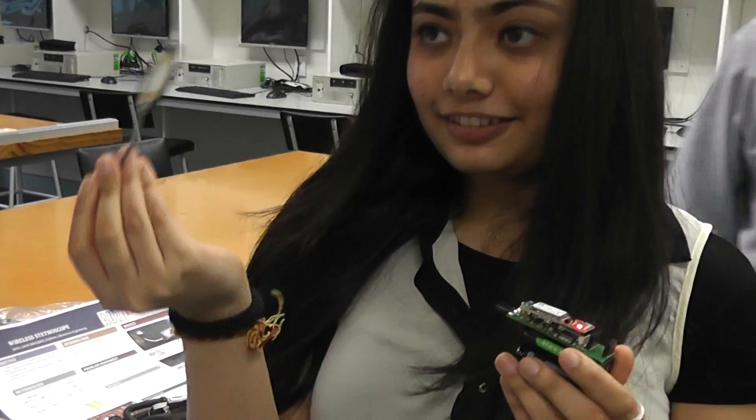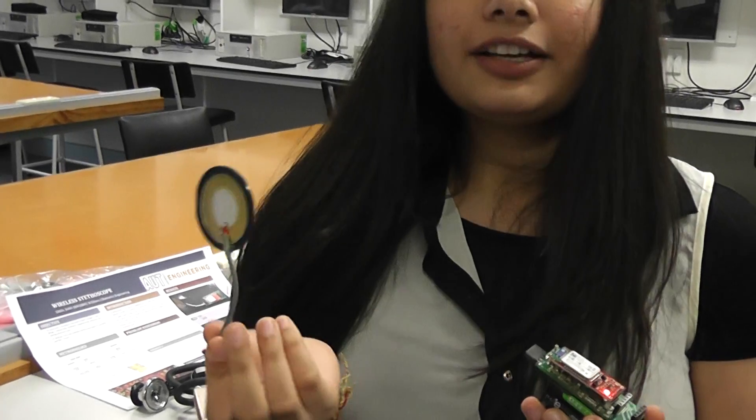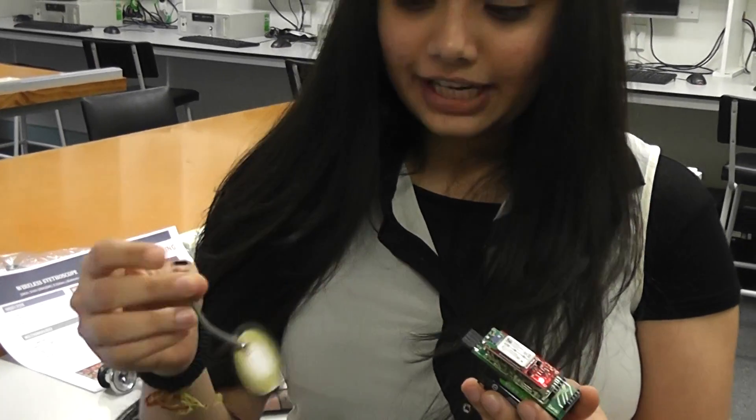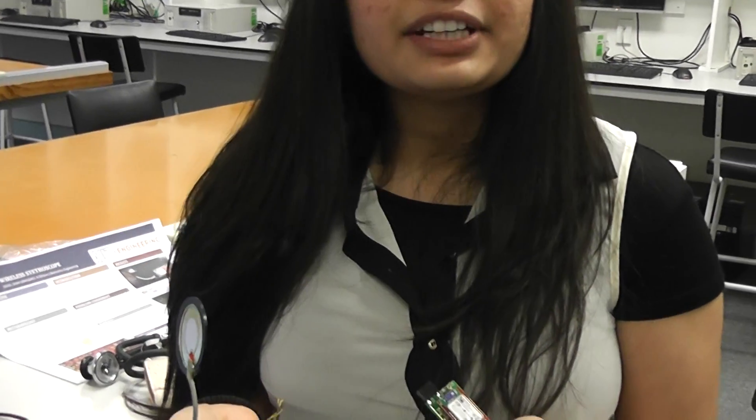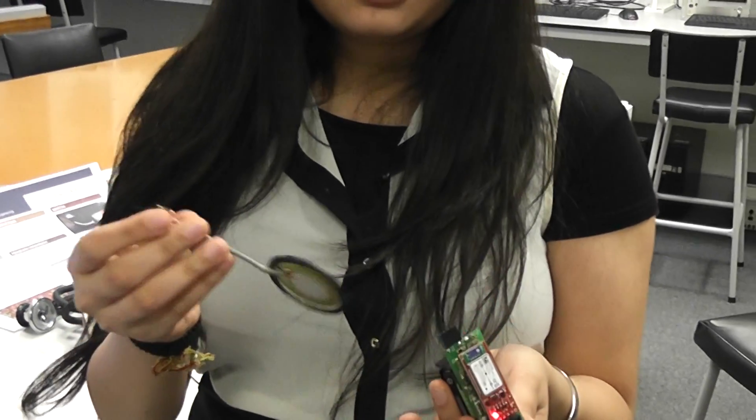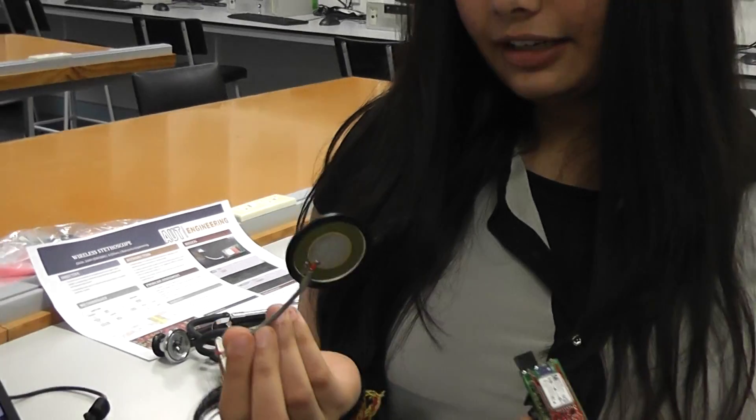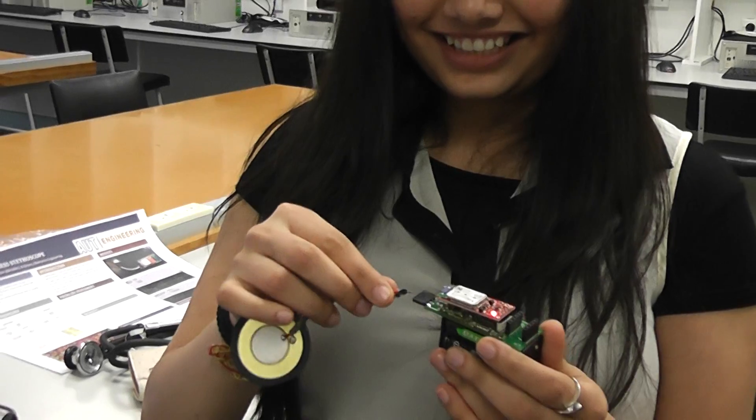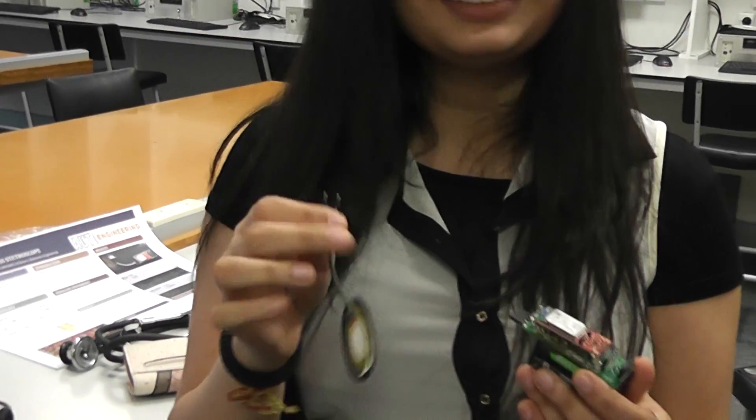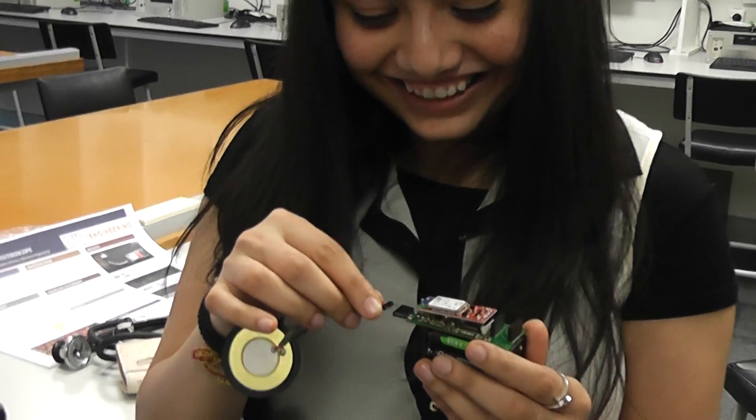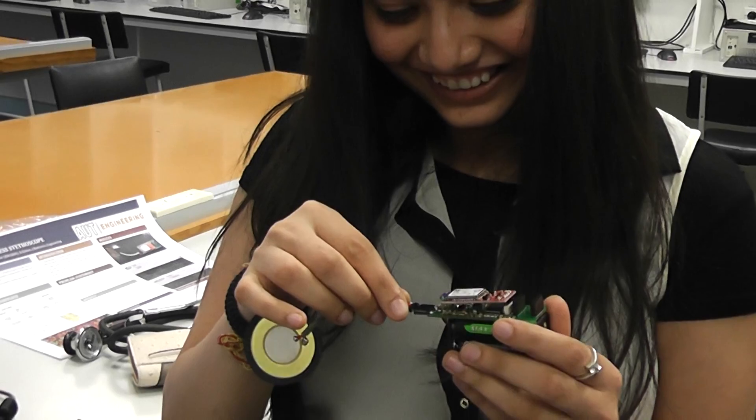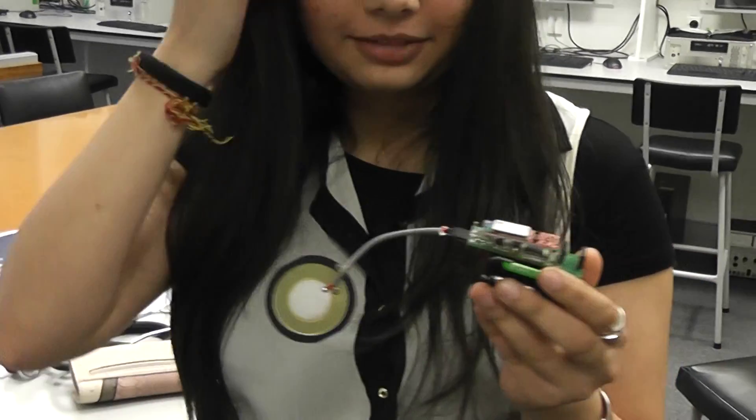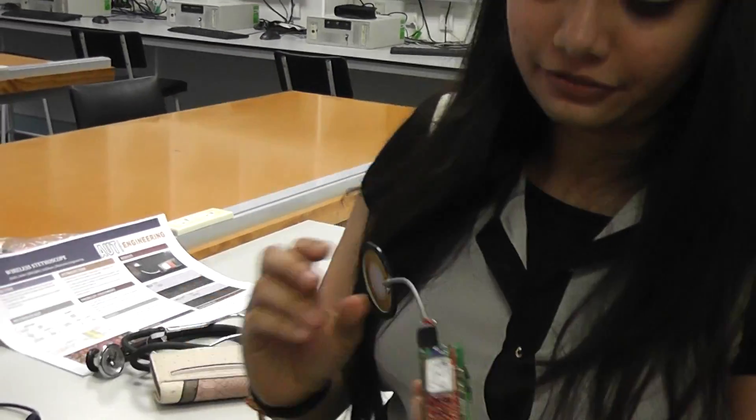And this is removable as well, so you can change it. Plus these are very cheap, so you can use it like needles for being germ-free. So it's got polarity on it, or does it not matter which way? It doesn't matter. This is basically a buzzer, but you can use it as a contact microphone. It's a piezo. It's like the thing you get in a PC. It's just easy to connect and they're very cheap as well, so you can make it germ-free.